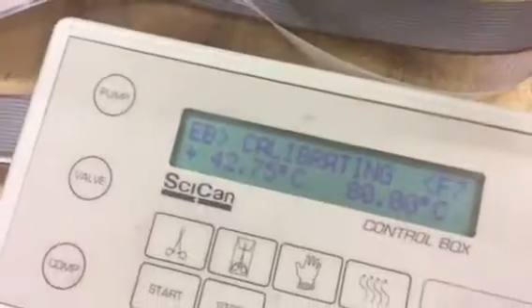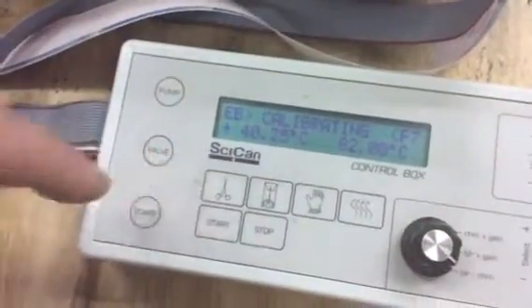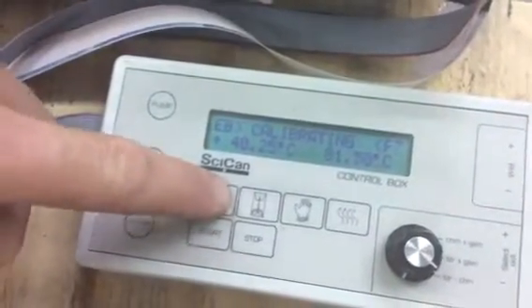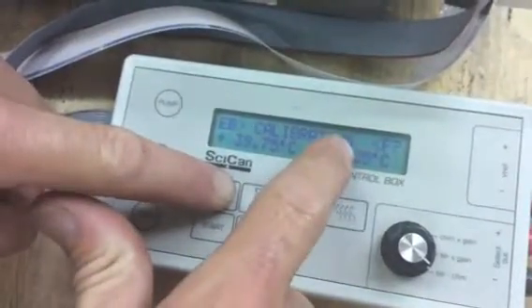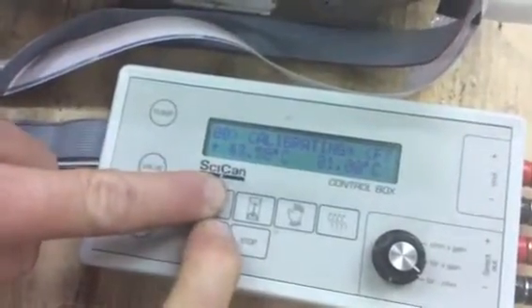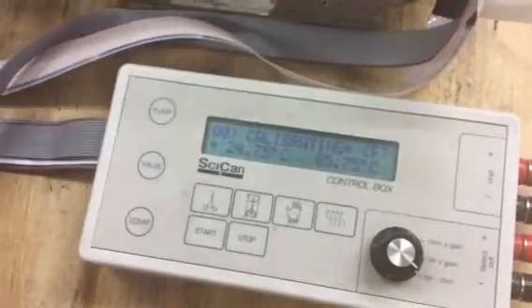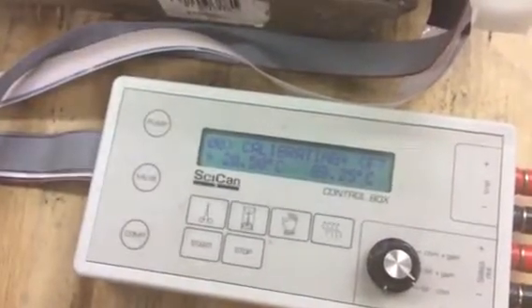When you turn the power on, you can pull that off. Come to your screen and you're going to see 'calibrating.' From there, hit the boiler calibration button, then hit the start button while engaging this other button, and we're going to look for a star that pops up right there. Hit start — we see the star. Now it's going to run a calibration cycle and hopefully get your boiler and chamber thermocoupler to agree.